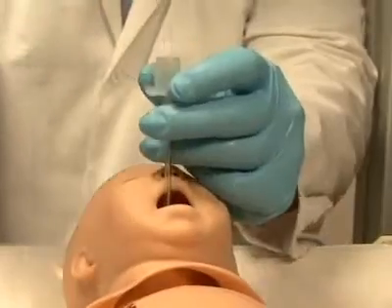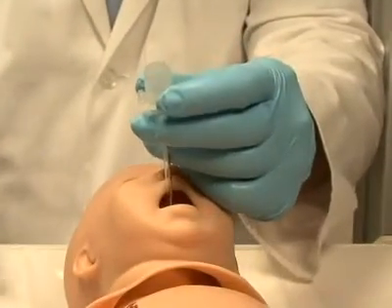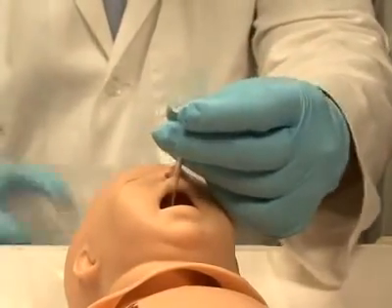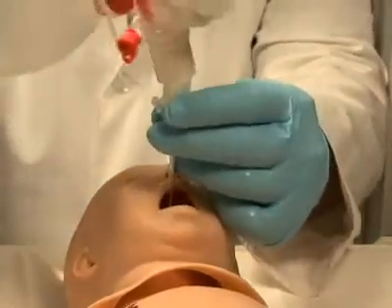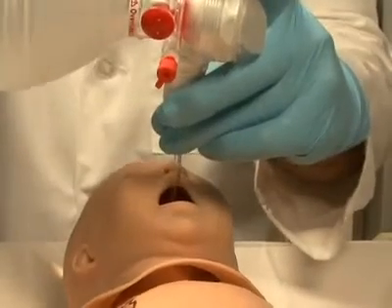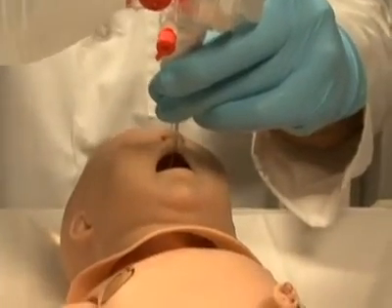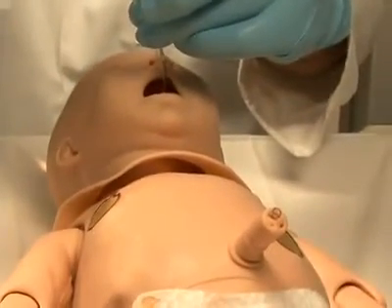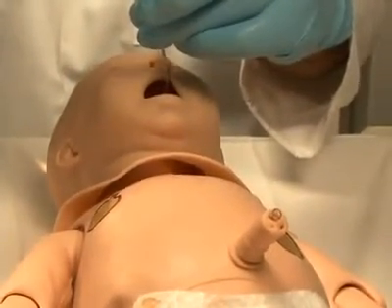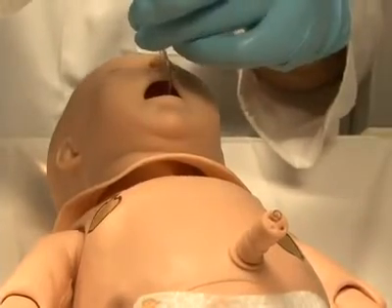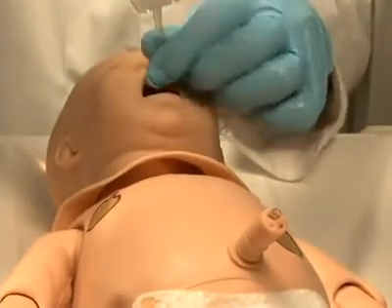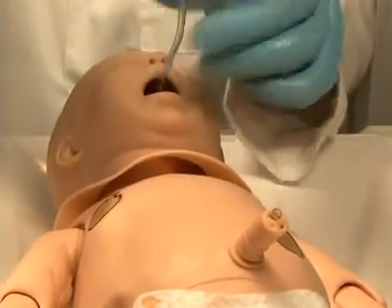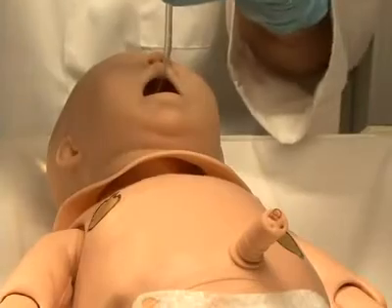Once intubated, sensors detect the depth of the intubating tube. Should the tube be inserted too deep, the left lung is automatically disabled, realistically demonstrating right main stem intubation. Correcting the tube position enables the left lung.